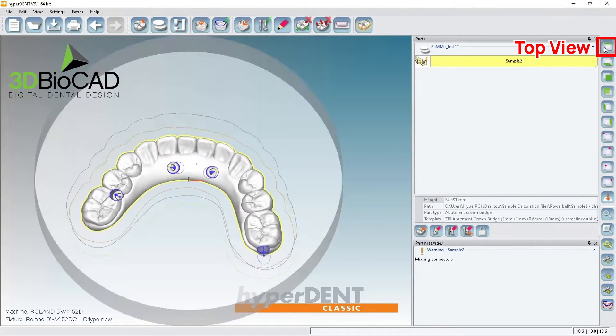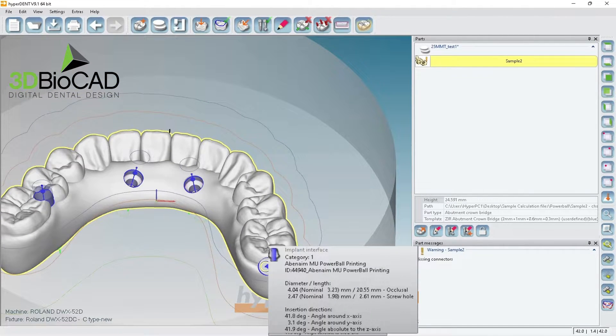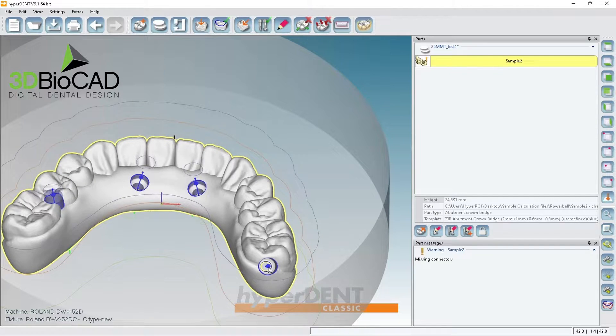If you bring the mouse to the screw channel it says 41.9 and 20.55mm occlusal height. Our tool is 20mm, so if we actually calculate this it'll probably error out. But for these crazy cases, 0.5mm is okay — the tool may not actually break.